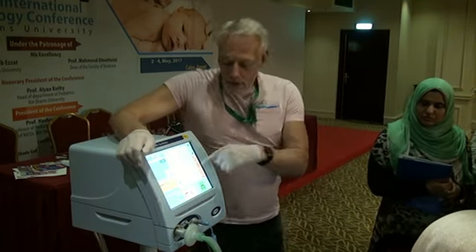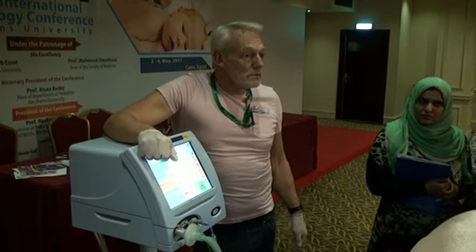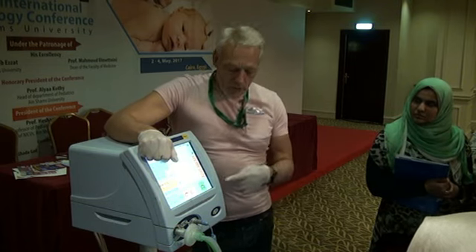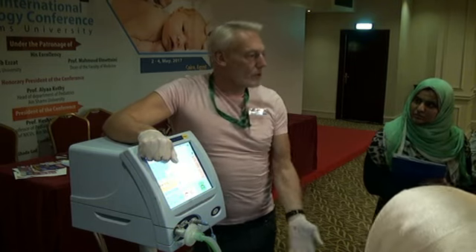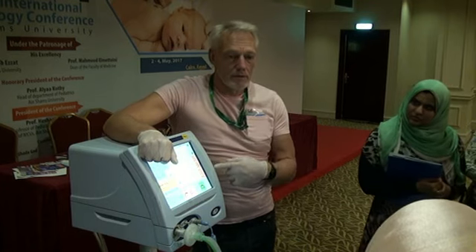Now, how long would you do that for, and how high would you go? So the baby saturation is stable. Settings are changed. Yeah. So what do you see happening if this was a live model? What would I be showing you? What would be happening as we did this?